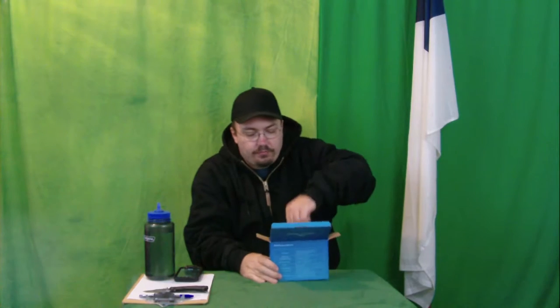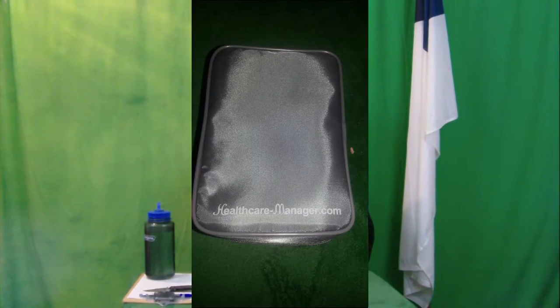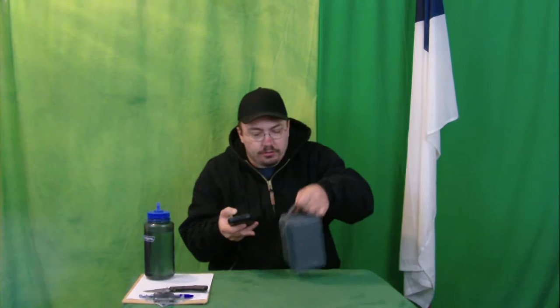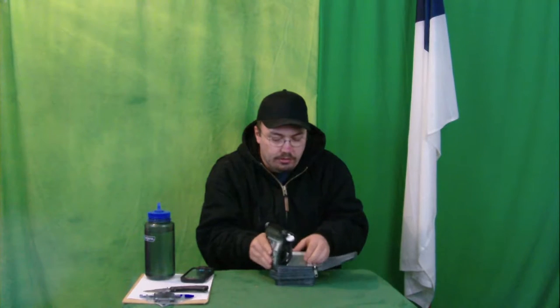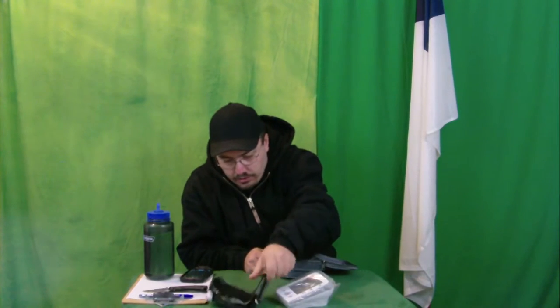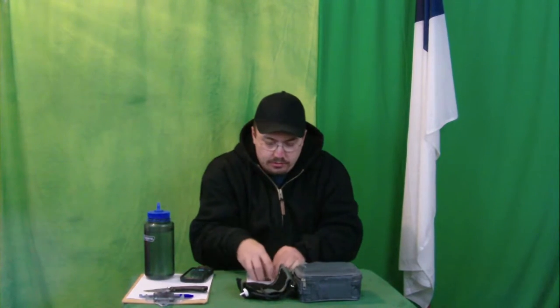Here we go. It comes in this nice, easy to use pouch. And let's turn it around — it looks like it even has a strap or little handle on the top. We got our batteries included — thank goodness! And we got our manual here. So let's get a nice little picture of everything that comes in the kit with our batteries.